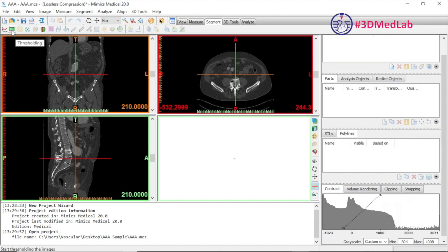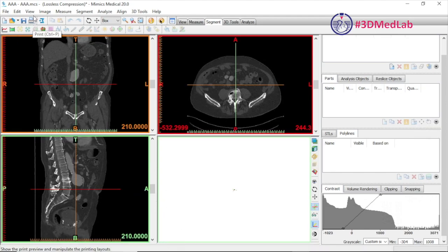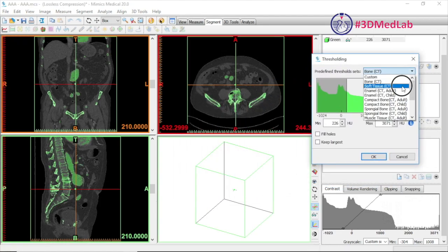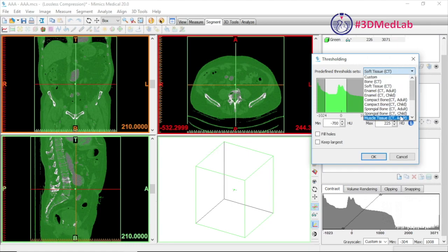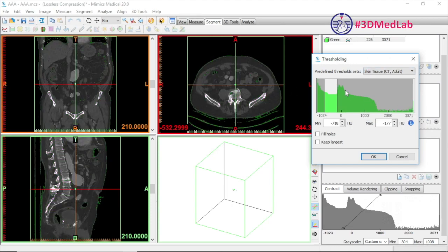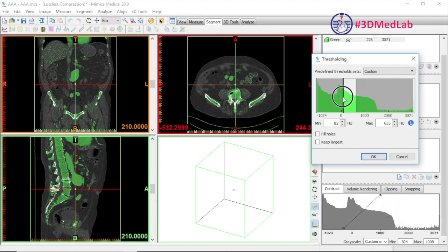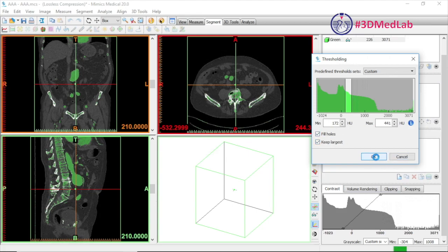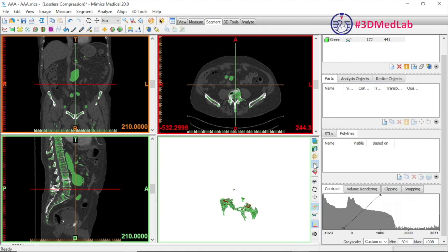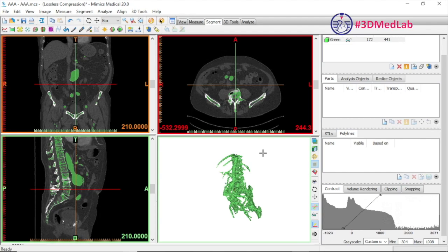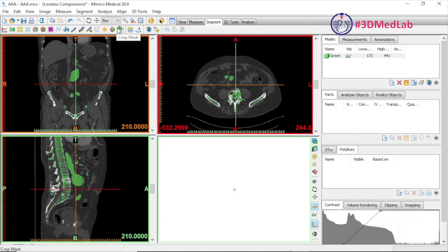The next step is to use the threshold function to select the areas you're interested in — this is the green button here. We'll move the log window out of the way. There are some presets which you can use if you're segmenting bone, for example, and a nice function that picks out the skin. What we're going to do is choose a custom threshold filter, entering manual values or using the slider bars to capture every area of interest. Don't worry if you get a little more tissue than intended — we can post-process and filter that out. This 3D preview button gives you a fast reconstruction of the segmented area, though it does use a fair bit of processing power so you can turn it off if you like.